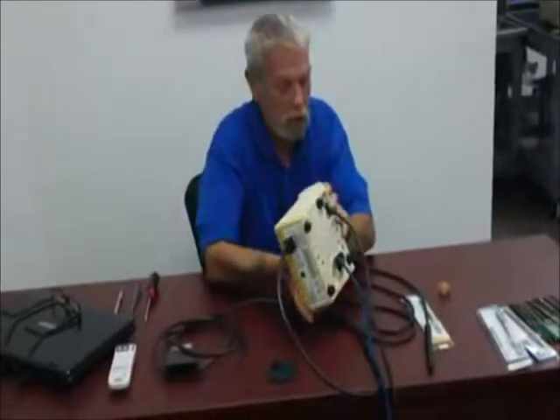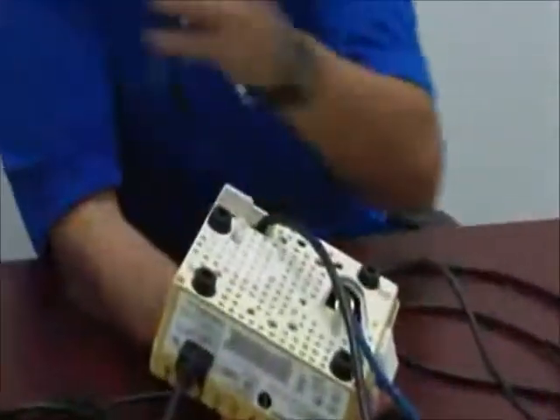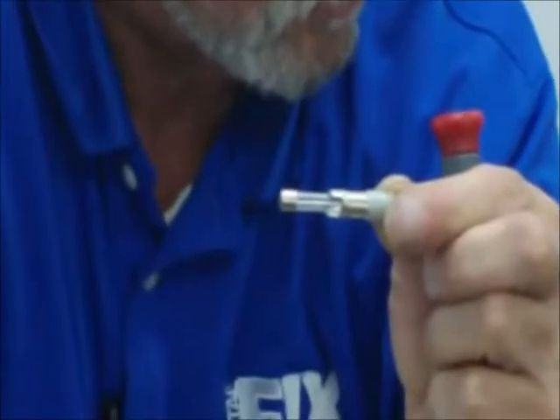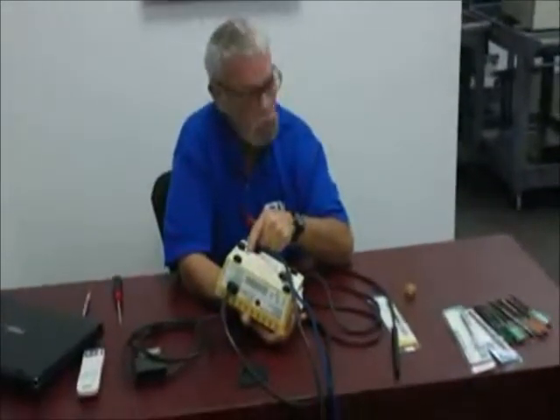Your third component, as we turn the machine over, is your incoming power cord — very simple, 110V with a male plug on the end. Plug it into a 110 power source. You also have a fuse in a standard bayonet fitting. You unscrew the fuse holder, the fuse comes out with it, and you check continuity. You can do a visual check for a broken filament, or check continuity with a meter.